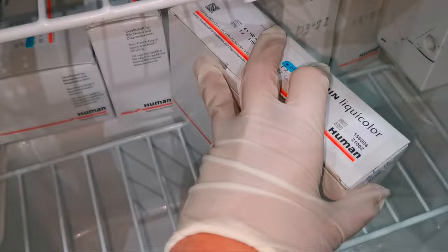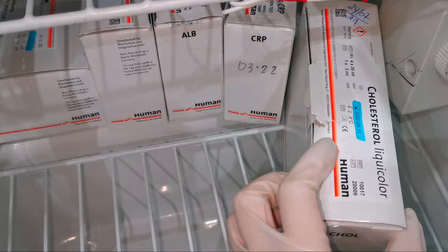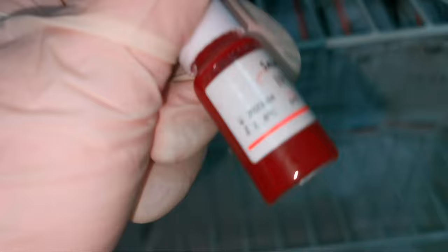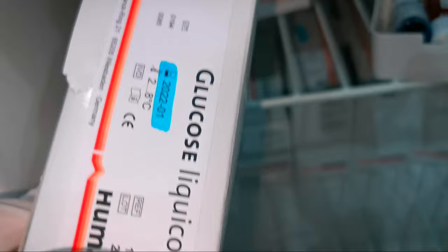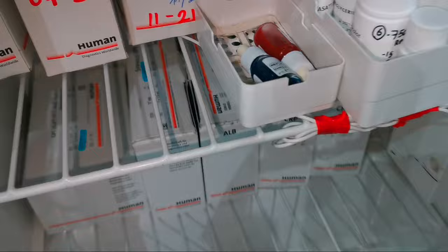Here we can see SGPT, RPR, albumin, CRP, cholesterol. Brucella, Salmonella. Reagent for glucose, total protein, triglycerides and SGOT.